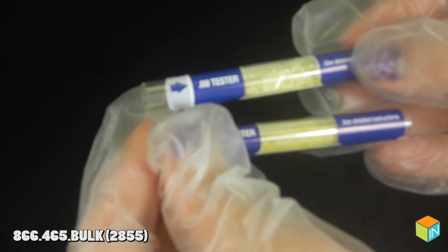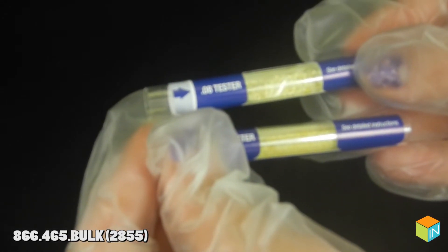Compare results against one or more unused tests. If most of the crystals are not aqua or green color, then the test is negative.